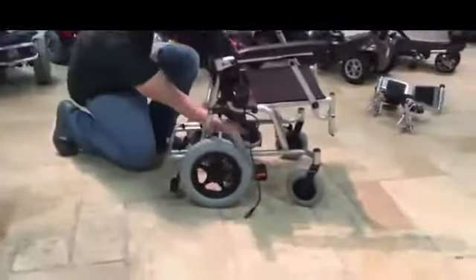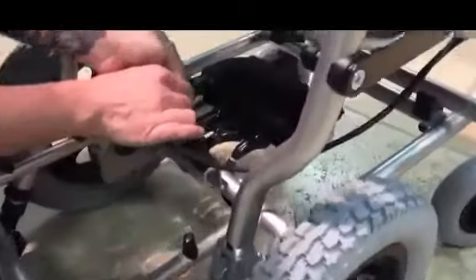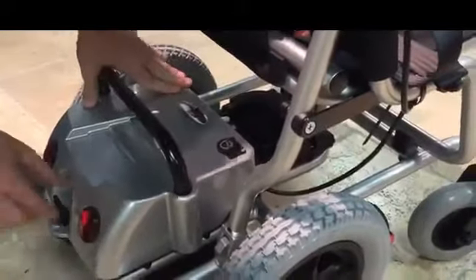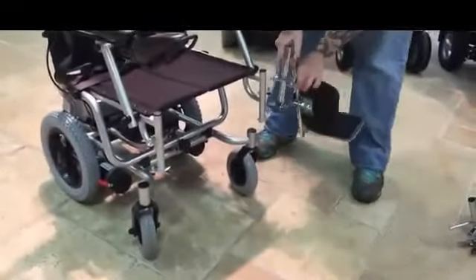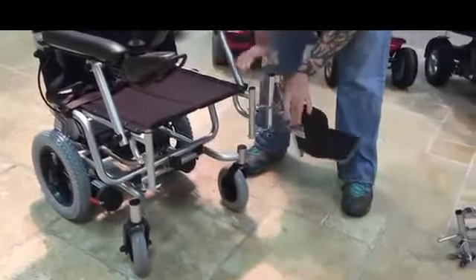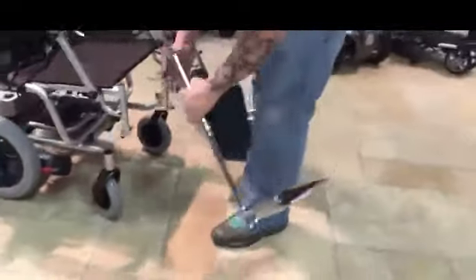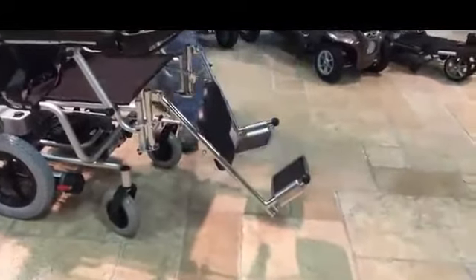We're going to come to the back and plug the controller back in. Now we're going to put the battery box in — make sure it's seated. Now we'll attach the leg rests. It'll click to lock into place. That's the reassembly of the chair.